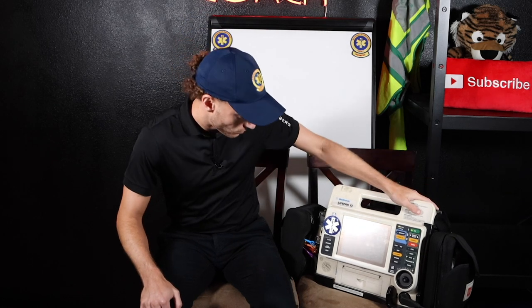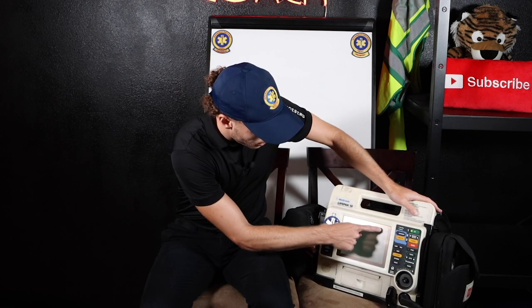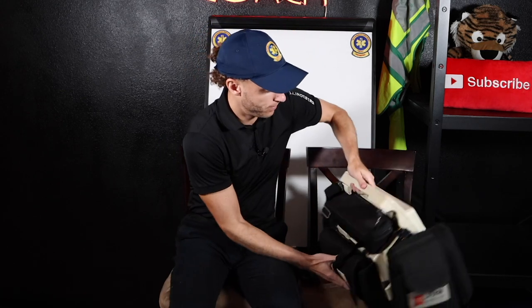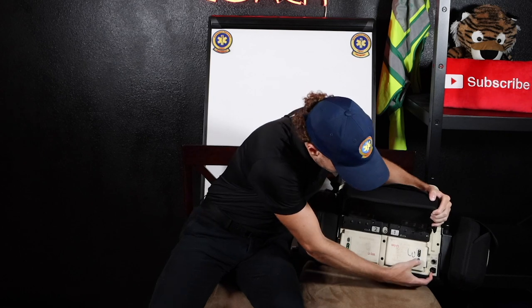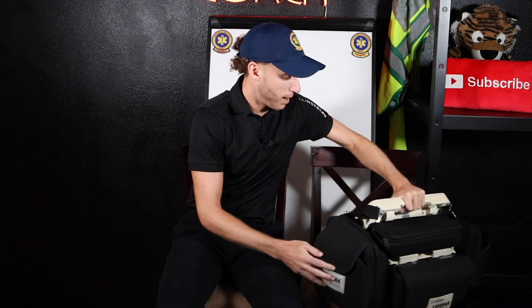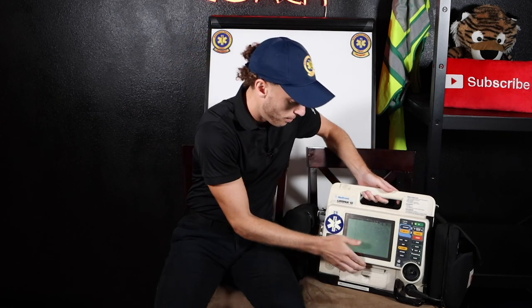The first thing is how do we turn the monitor on? Click on and it'll light up. Now, you have two batteries here. I'm going to show you just the mainstays. If I flip this thing around, right back here, if I go like this, there are the batteries right here. You just go like that. You can see the battery levels. There are two batteries. I'm going to flip this around to the front side. That's the batteries — change the batteries, we solved that problem.